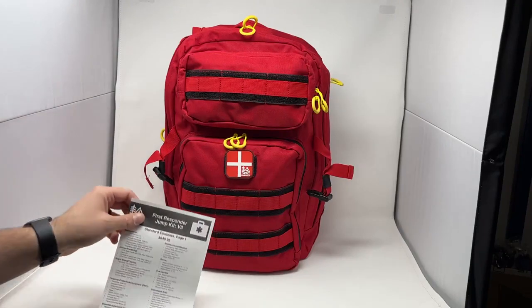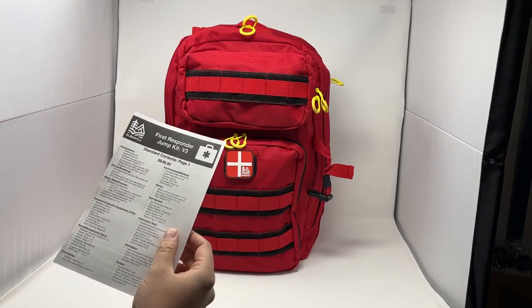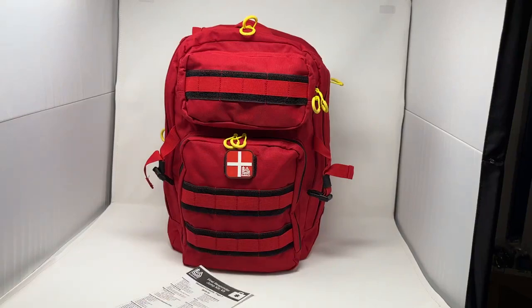This is an overview of the First Responder Jump Kit version 3. This kit is designed to be an all-encompassing kit for anyone trained at the First Responder level to provide treatment for really anything you're going to come across in a standard situation. It's a perfect kit for event medical response, group bag response if you're overlanding, keeping in your vehicle, or responding to any other disaster relief.